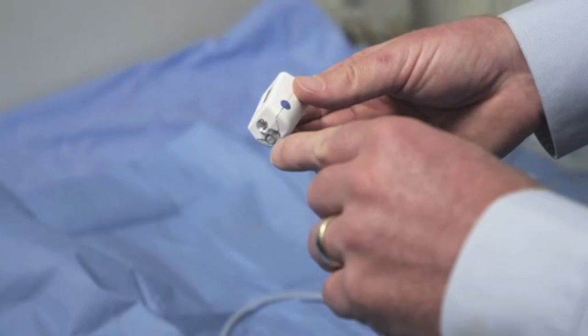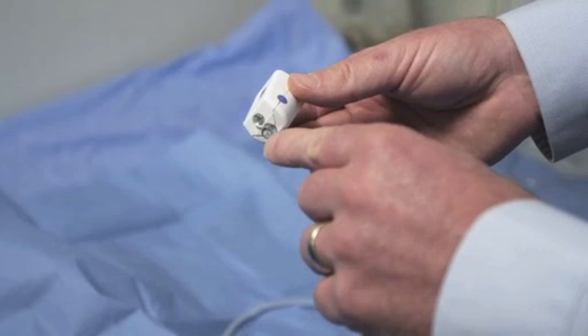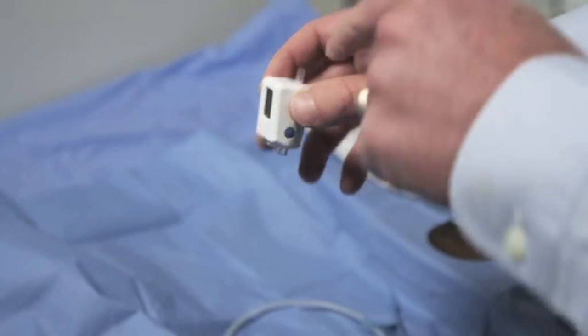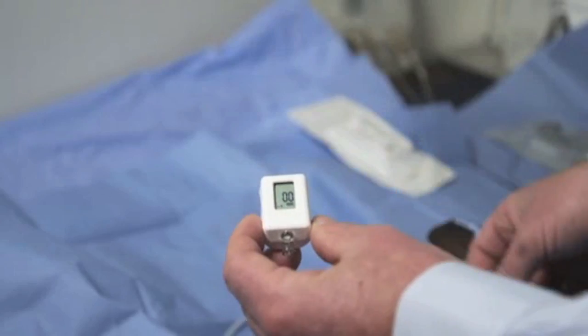During this process, it's important to make sure that at minimum, either one or the other end of the device is open to atmospheric pressure.